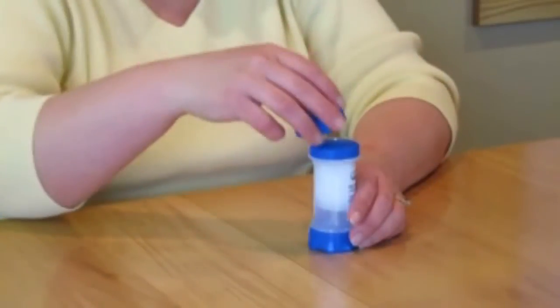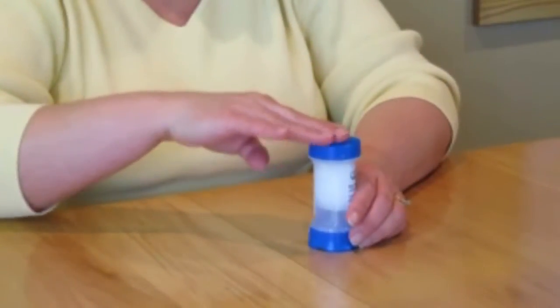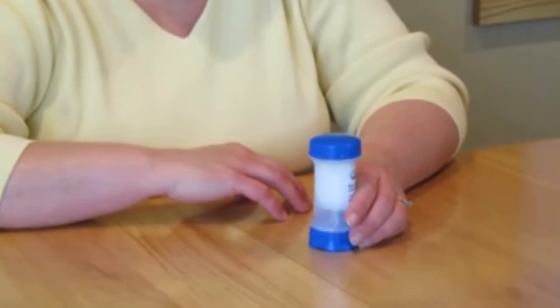Prevent evaporation of the next dose by snapping the cap on completely when you are done. Please call the pharmacy three to five days before your prescription runs out. That way we can have your prescription ready for you when you need it.